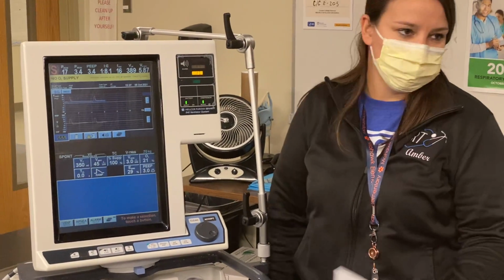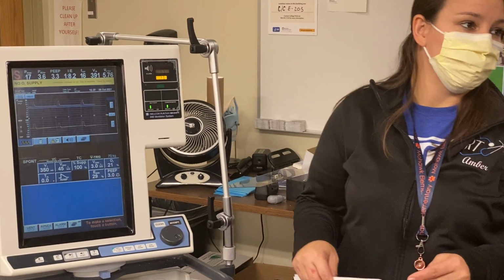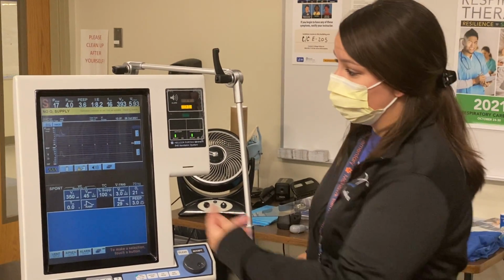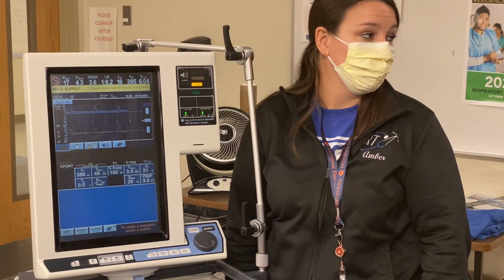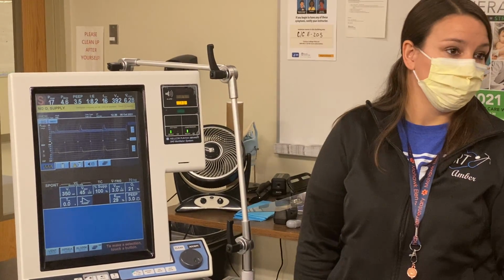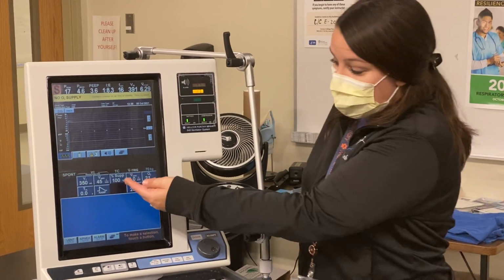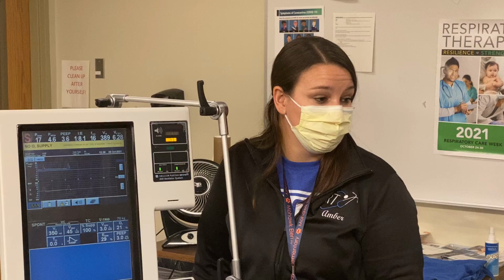And just for the sake of numbers, I would say you calculate out your spontaneous tidal volume, and you're supposed to have 450 to 550, okay? We look at this, I would say, is this good enough for your patient? You would say, no, because my target tidal volume is 450 to 550, I'm only getting 395. I'd say, okay, well, what could you do in this situation? Put them on pressure support, okay? You cannot add any more support in tube compensation because we are already at our max.